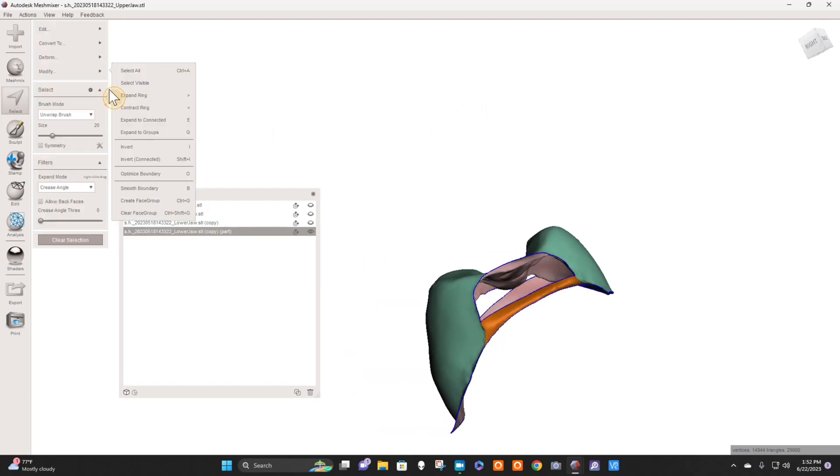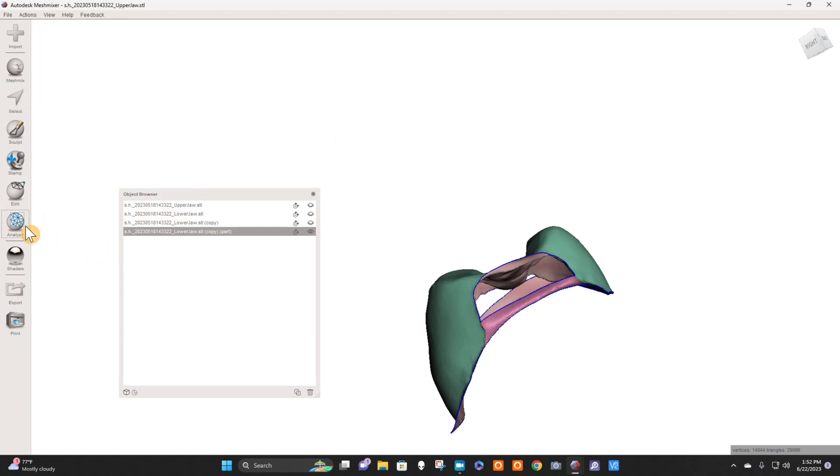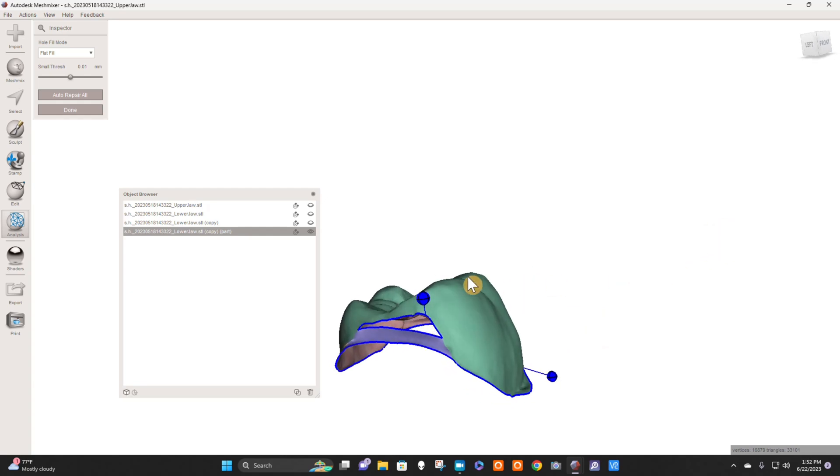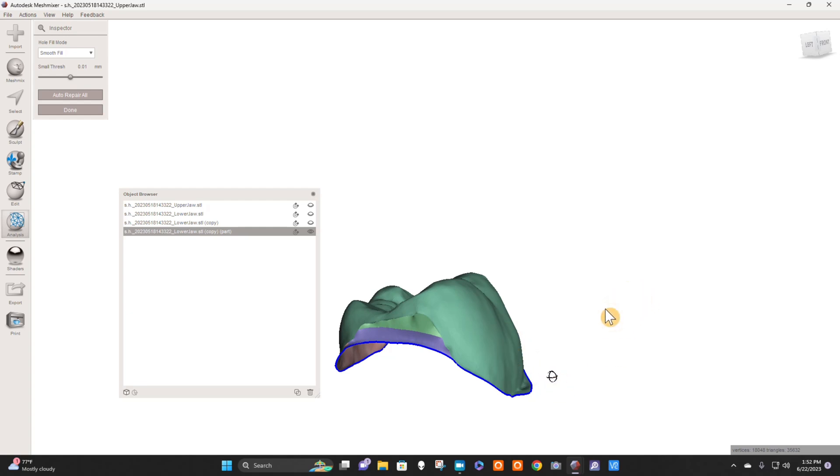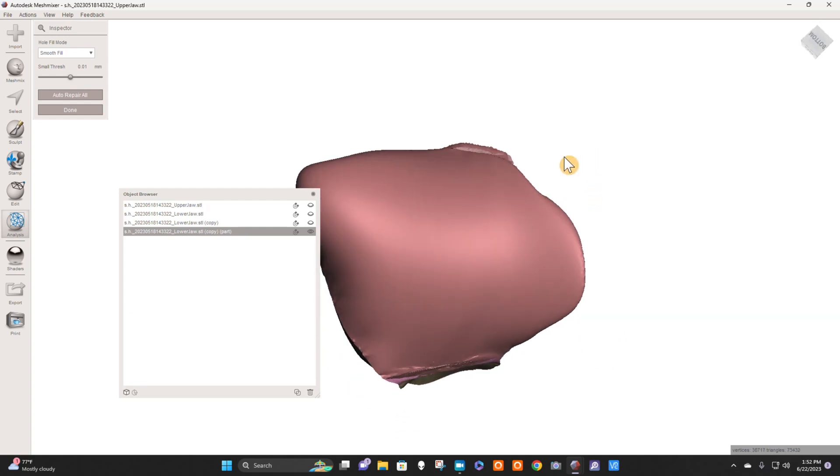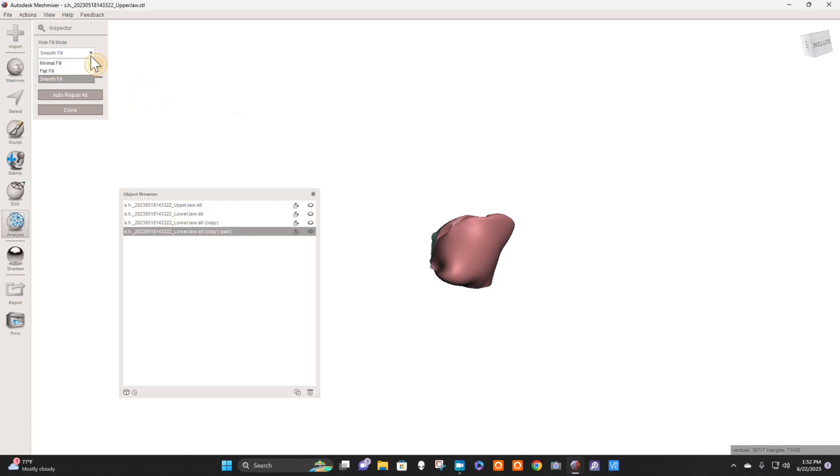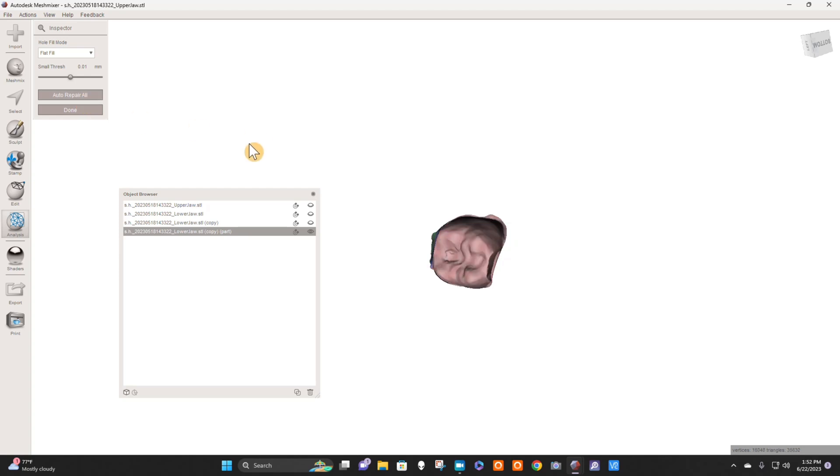So now when I go to Analysis Inspector, I have a proximal surface here and here that will fill in flat, and then I can fill in this with a smooth fill on the bottom. That smooth fill's wonky, so I'm going to go to flat fill. Let me hit Ctrl Z to back up and switch to flat fill.